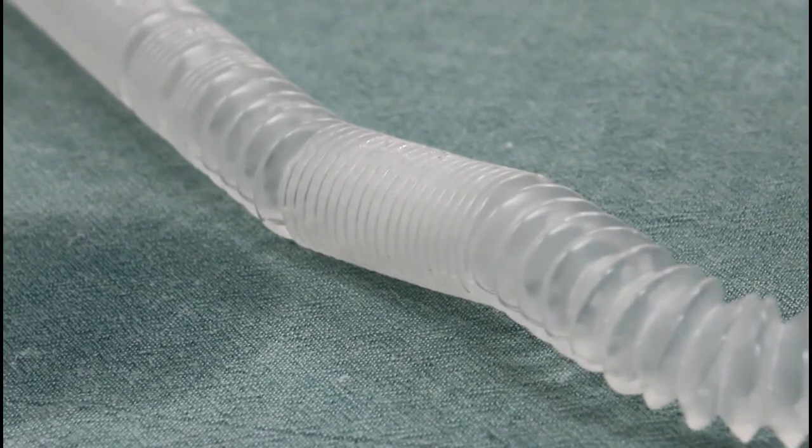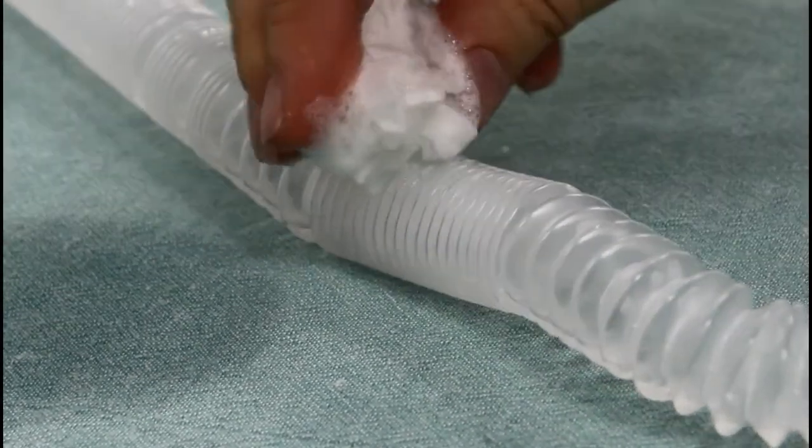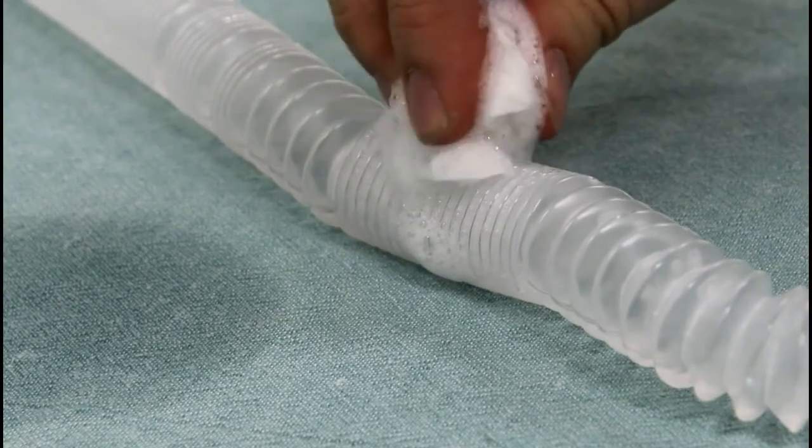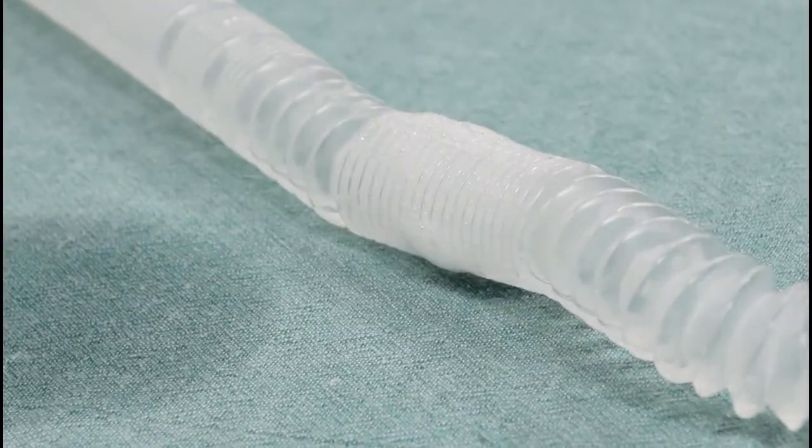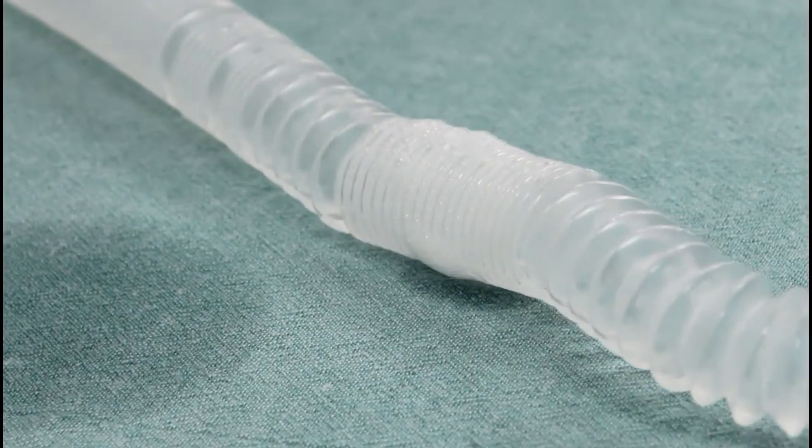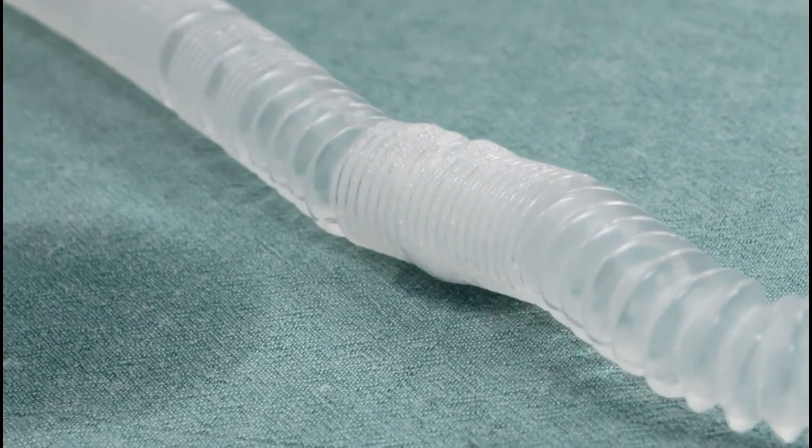If the circuit cannot be moved enough to submerge it, a leak can also be determined by spraying the tube with soapy water. To do this, block one end and blow through the other. Bubbles should rise from the side of the leak.